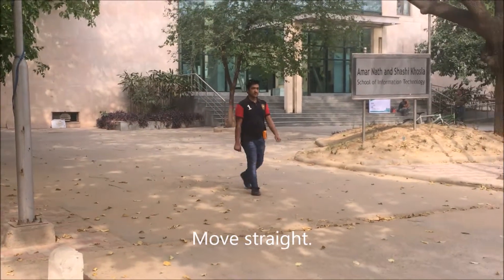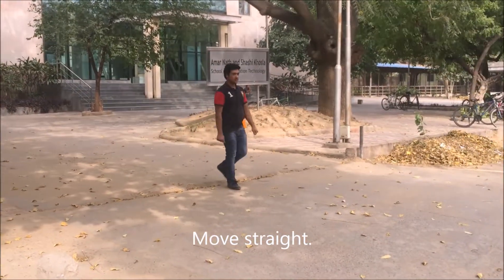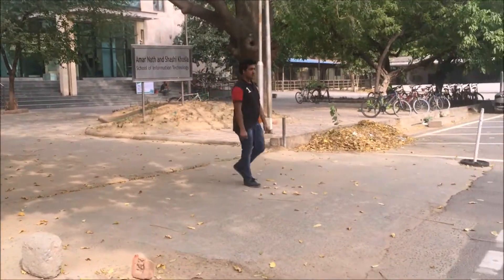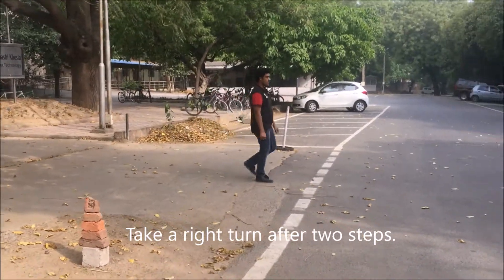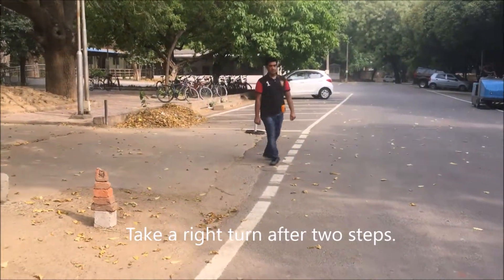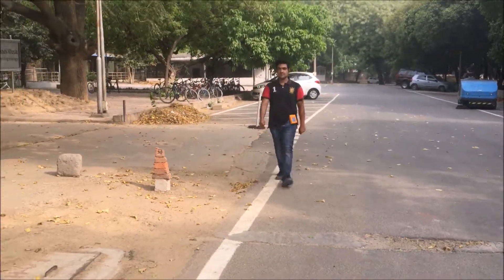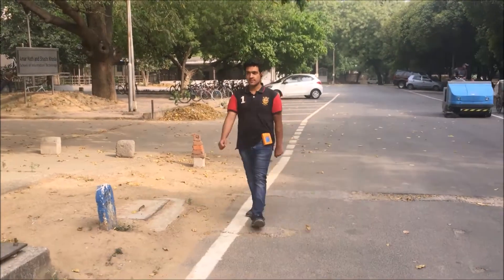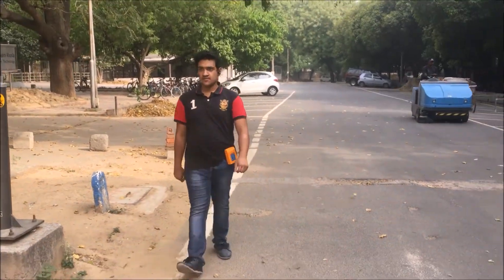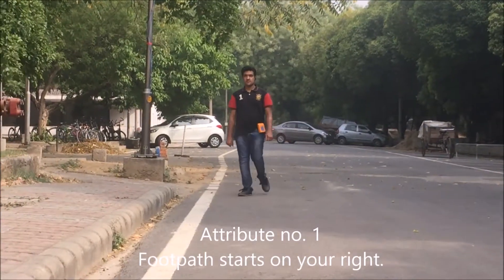Move straight. Take a right turn after two steps. Footpath starts on your right.